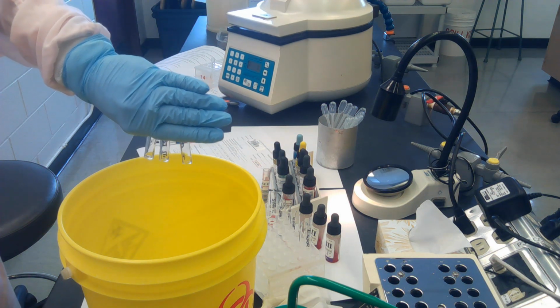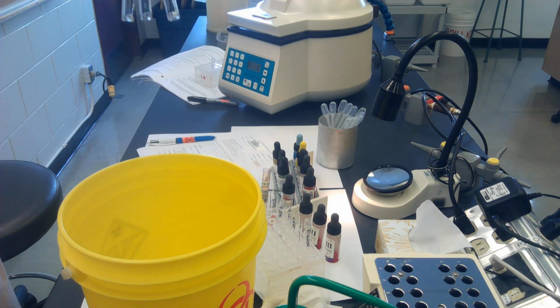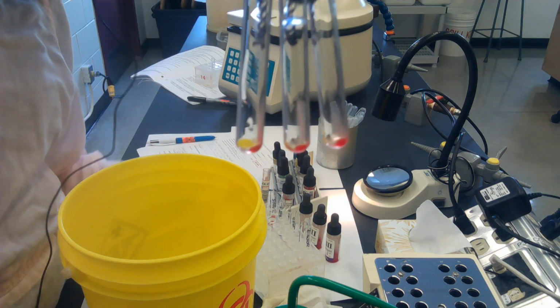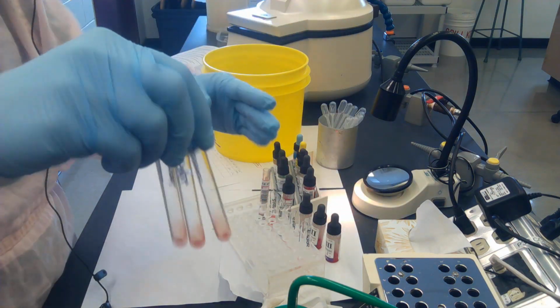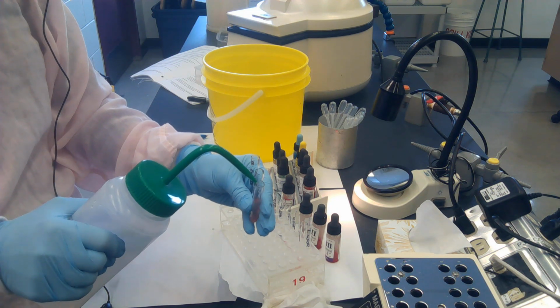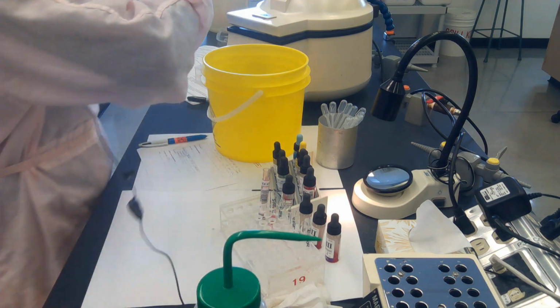You can see there's still liquid there. I come up slowly because I don't want to slosh the liquid up into my tube. So I come up slowly and then a forceful down. And when I come back up, I've got a nice dry cell button. Very little liquid left in my tubes. So I shake those up and again forcefully add saline. And put them into wash for 45 seconds.